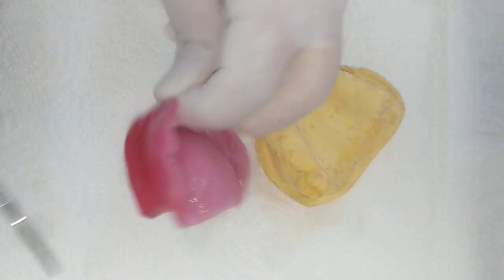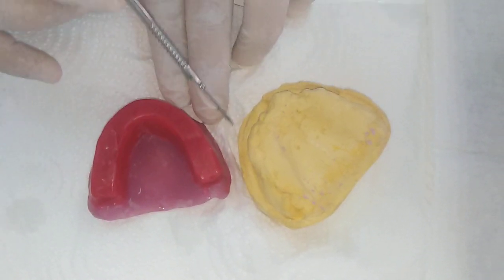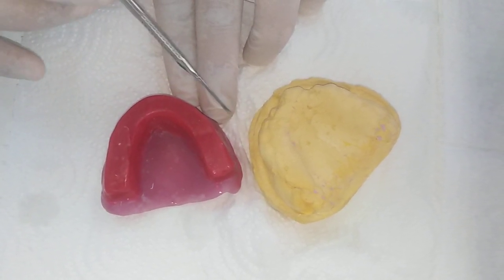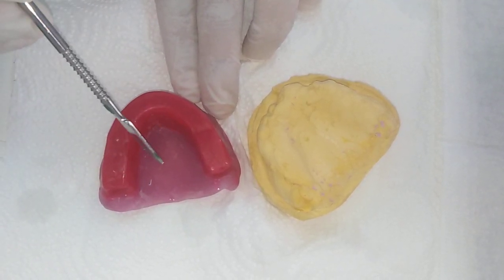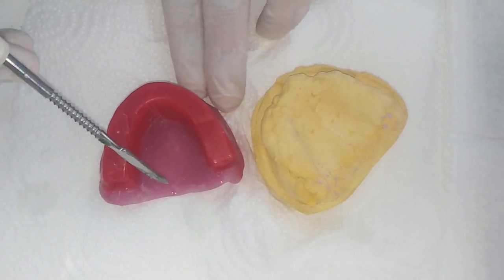Additionally, when you have the wax, it is bulky and sometimes not adapted to the tongue space and the cheek space. So interference comes from the tongue or from the tissue on the side before you have trimmed the wax rim into place. All of that causes incorrect muscular control, which also reduces retention.